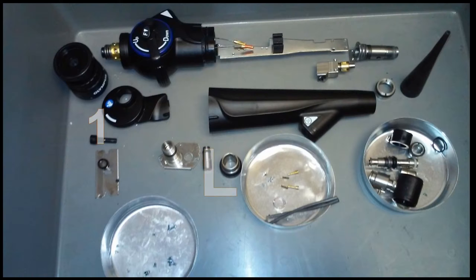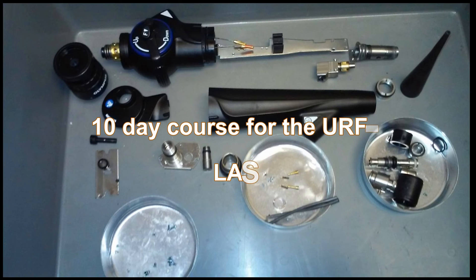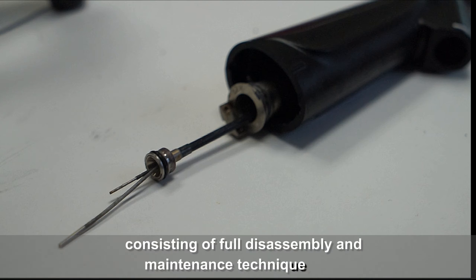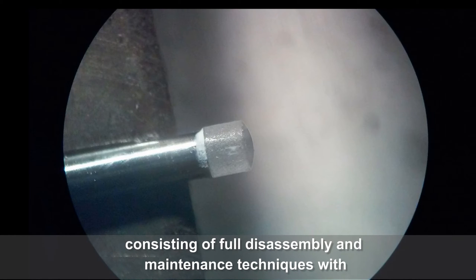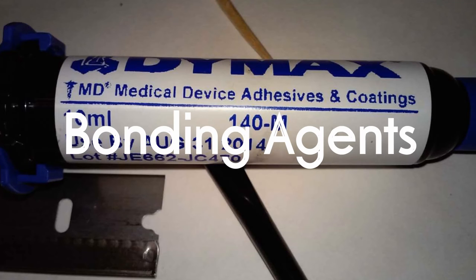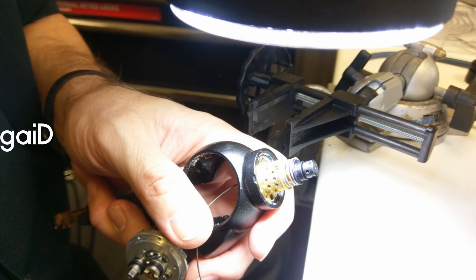We have just finished a custom-designed 10-day course for the URF P5, consisting of full disassembly and maintenance techniques with parts, bonding agents, materials, and diagnostics.